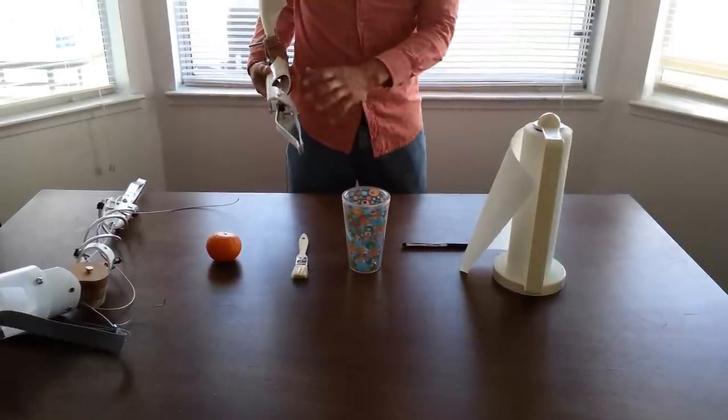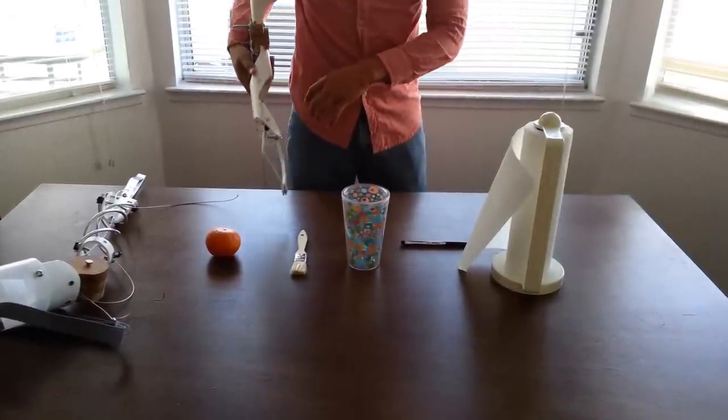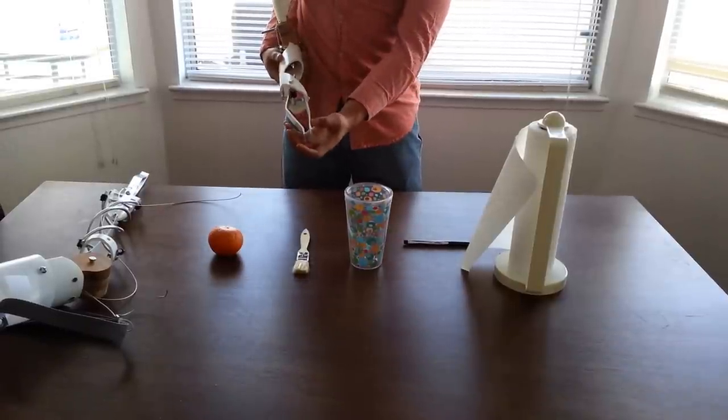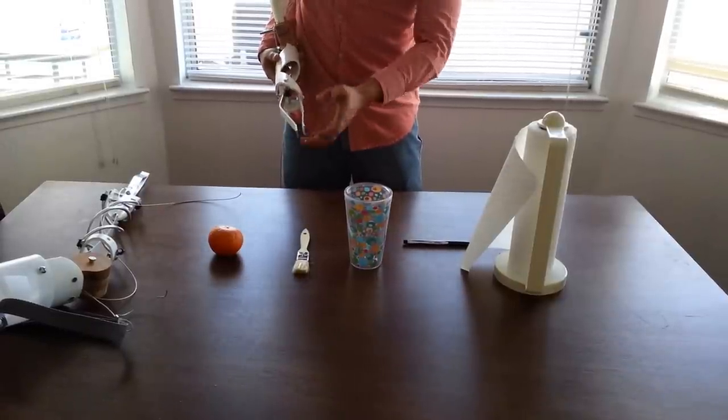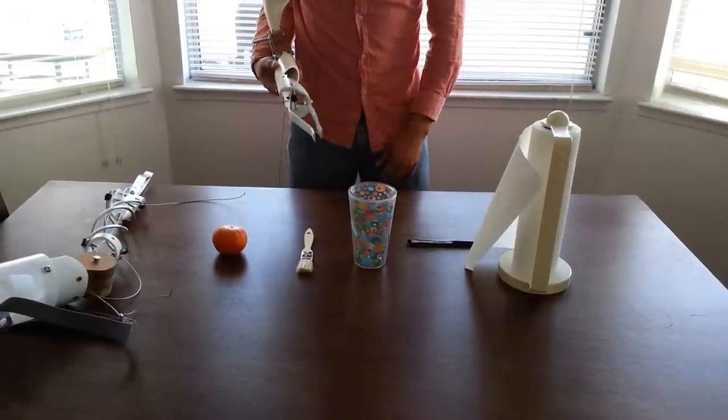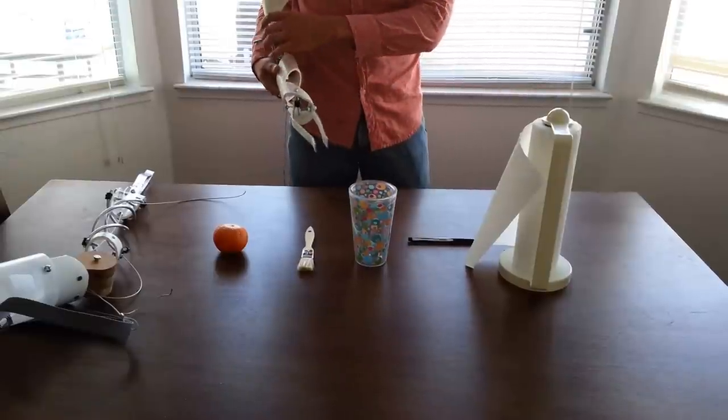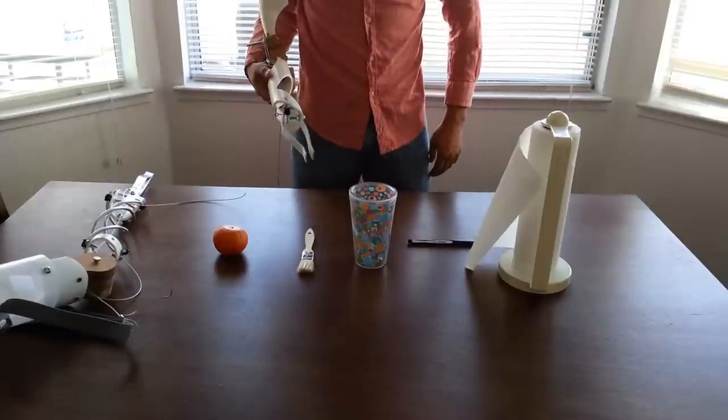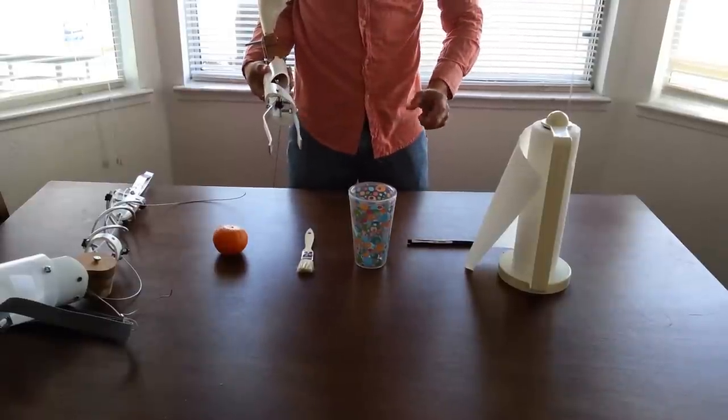The first one is made of PVC, cut out in a certain shape. Then it has aluminum tongs to act as the fingers to go out. It's going to have a steel cable running through the middle to activate the closing and opening fingers.